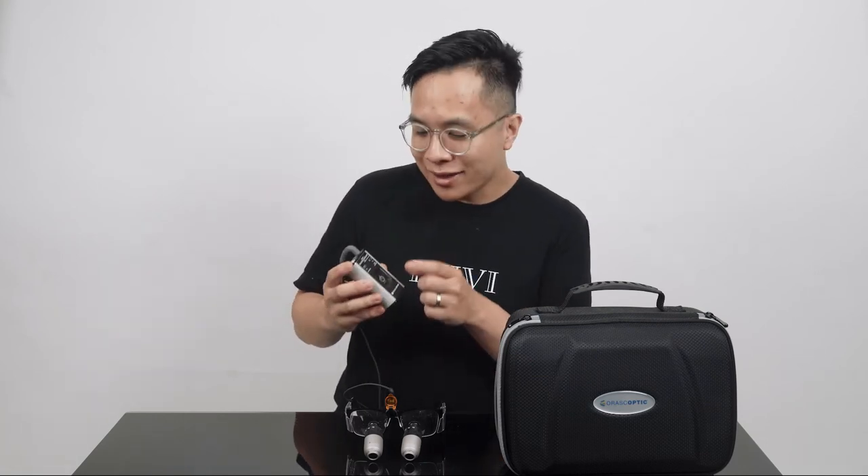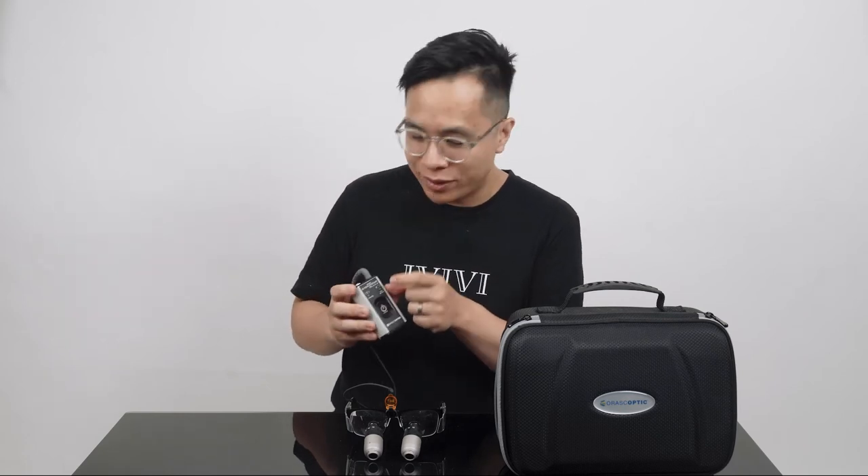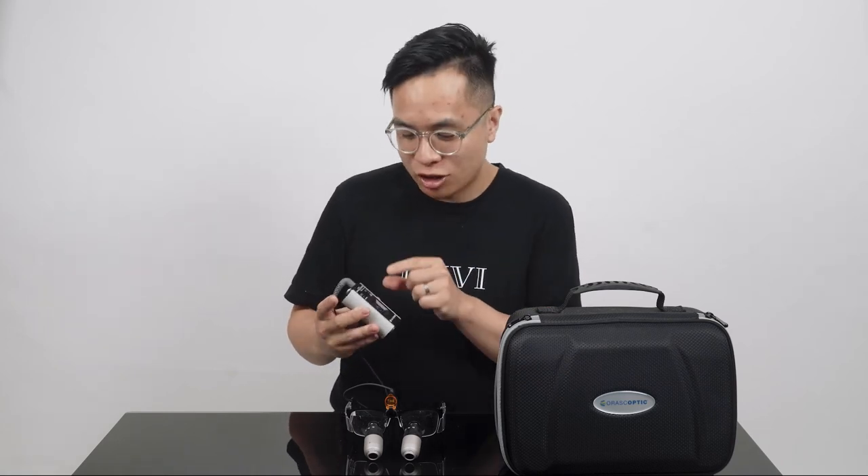There is an LED light that tells you when it's charging and an LED light that tells you when there's low battery. I haven't read the actual manual, so I'm guilty of that, but I don't know what the low battery light even means — does it mean you have two minutes left or 30 minutes left? I find this a little confusing and not really that useful. I personally would have preferred an indicator that told me when I'm at 50 percent, 25 percent, or five percent.